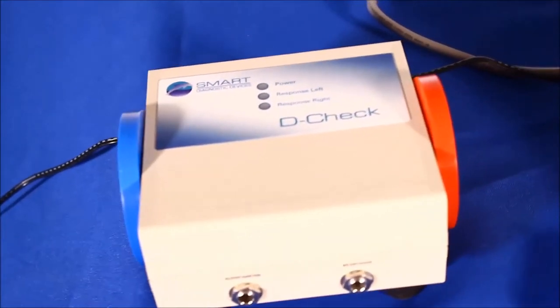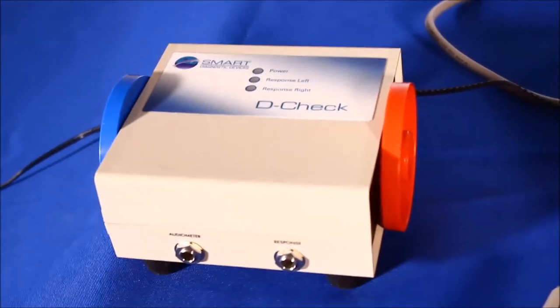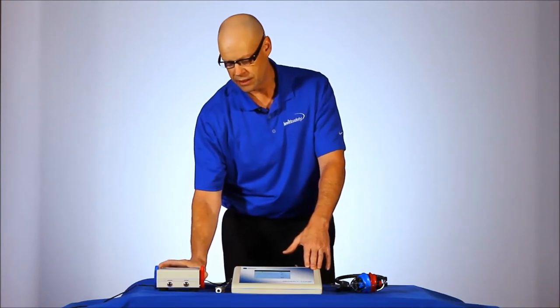We also recommend this device with the purchase of the Smart Tone Audiometer. This is the D-check that goes with it, and it performs your daily calibration verification.